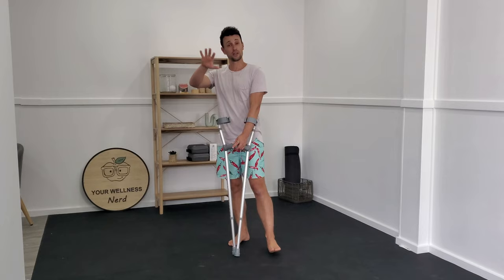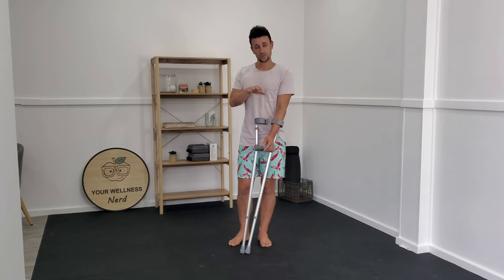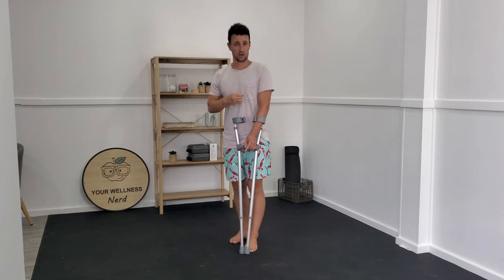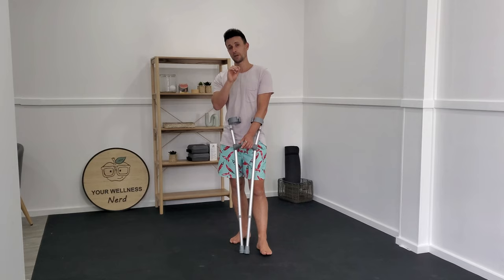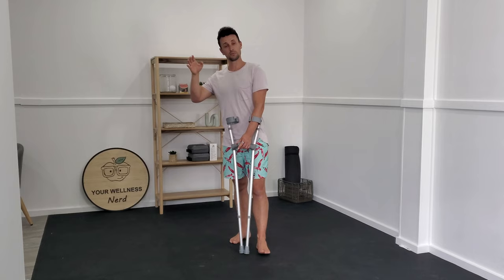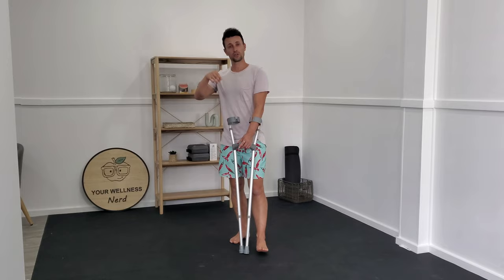But if you're always listening to how your body feels, how long you're using those crutches, and what amount of body weight you're putting through that affected leg, you'll have far more insight than anyone else as to when the appropriate time is to take away these crutches. It's always important to check in with your health professional or doctor to make sure they're okay with that next step. But if you've naturally progressed from not loading it much to loading it fully and feeling comfortable without limping, that's a very strong sign you can progress off those crutches.